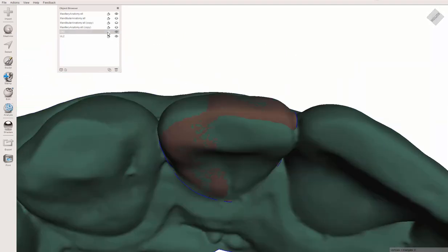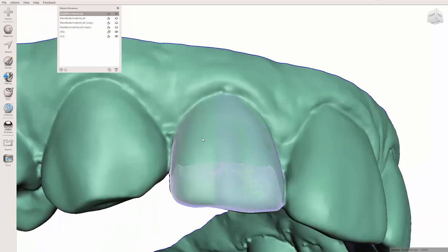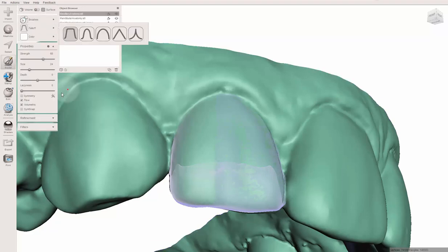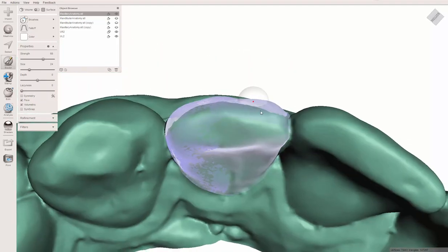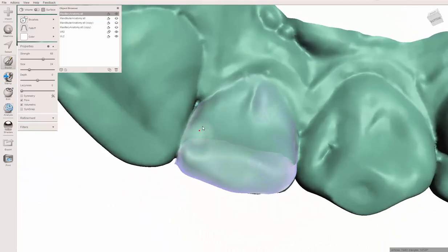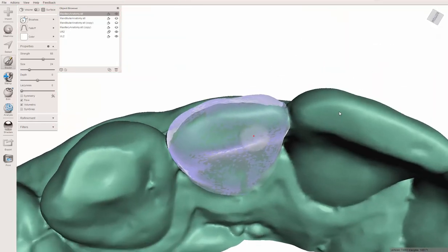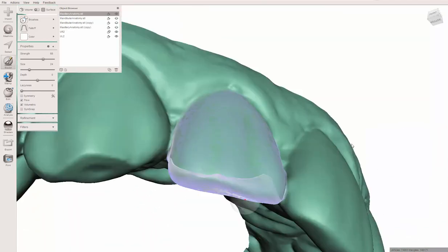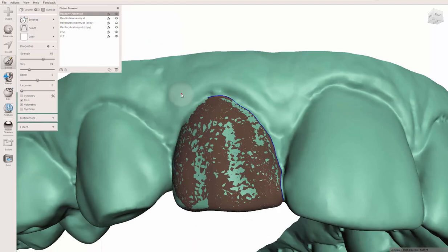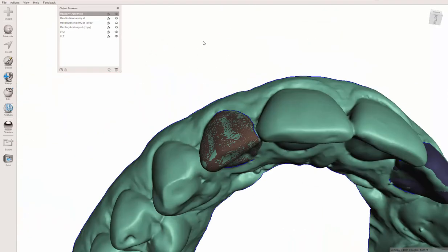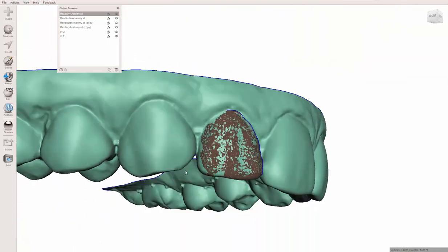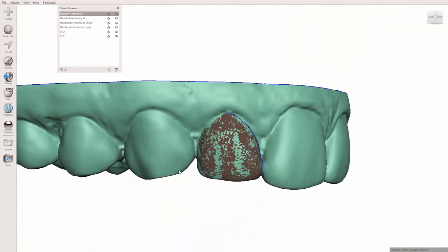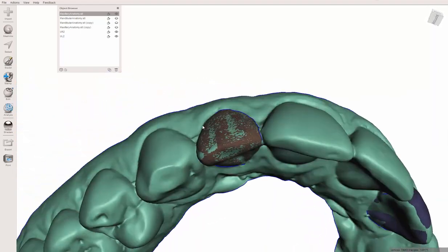But in her case, I actually want this to be her final retainer. Since I want this to be her final retainer, I'm going to have to be a little more creative because I don't want dimples in a final tray. They tend to collapse and you might get a little bit of relapse. So instead, I'm going to turn this back on and try to use the magnet to zip it back. Just pulling the tooth back a little bit. Don't worry about getting the embrasures too much because that surface sort of ends there.